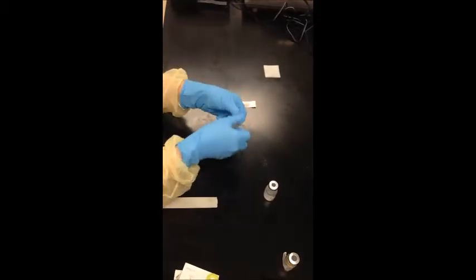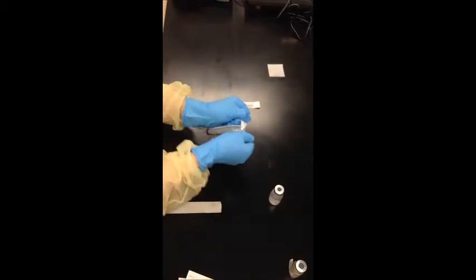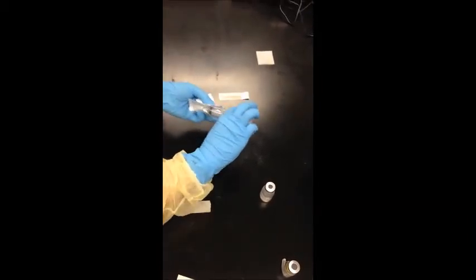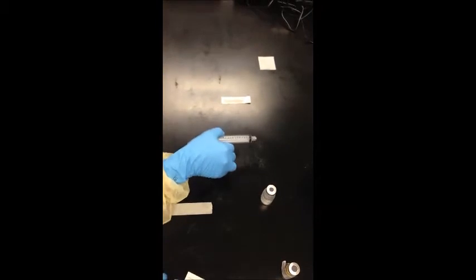Unwrap syringe and needle, making sure not to cross in front of first air, and attach needle to syringe. Do not touch any critical sites and make sure you are working 6 inches inside the hood at all times.